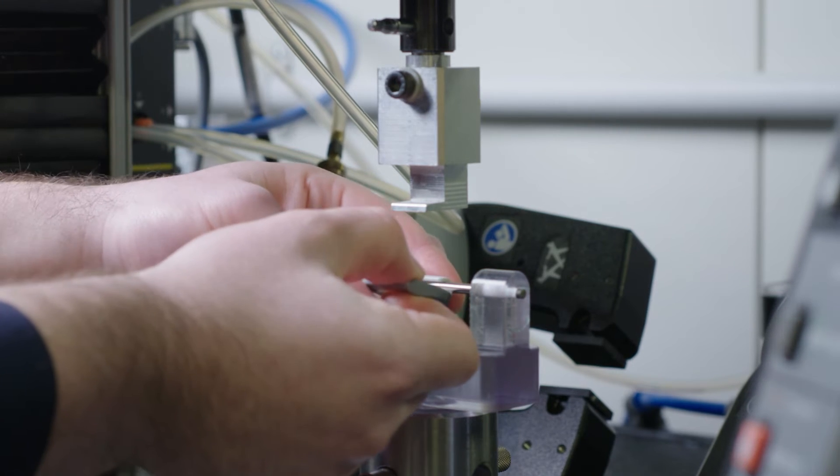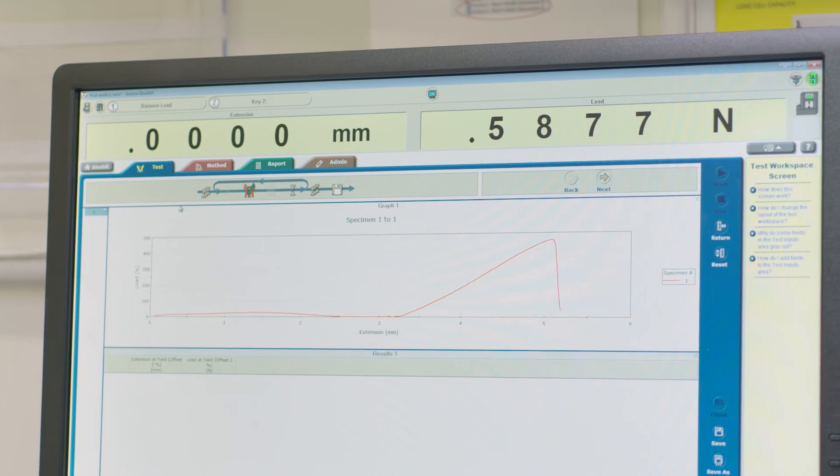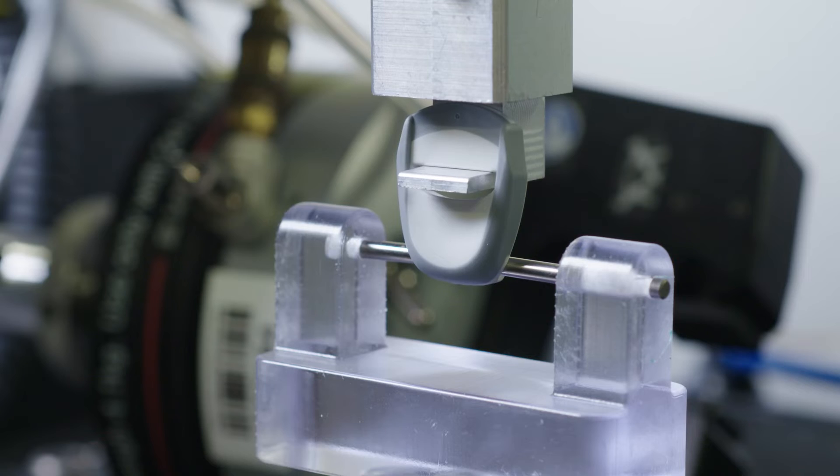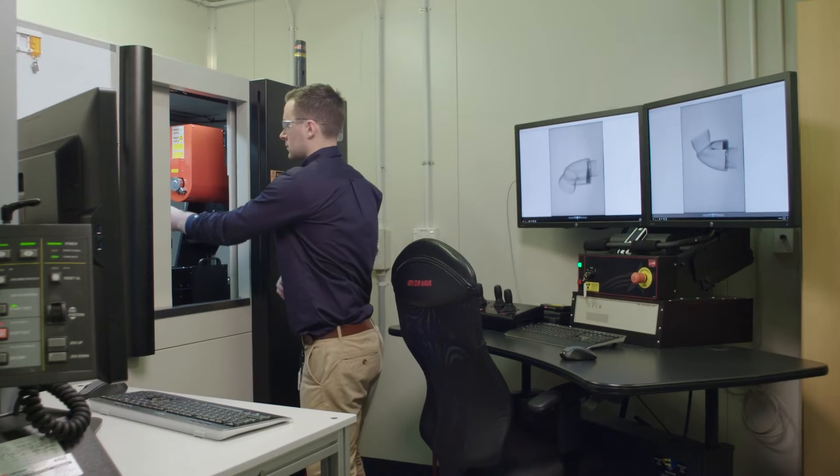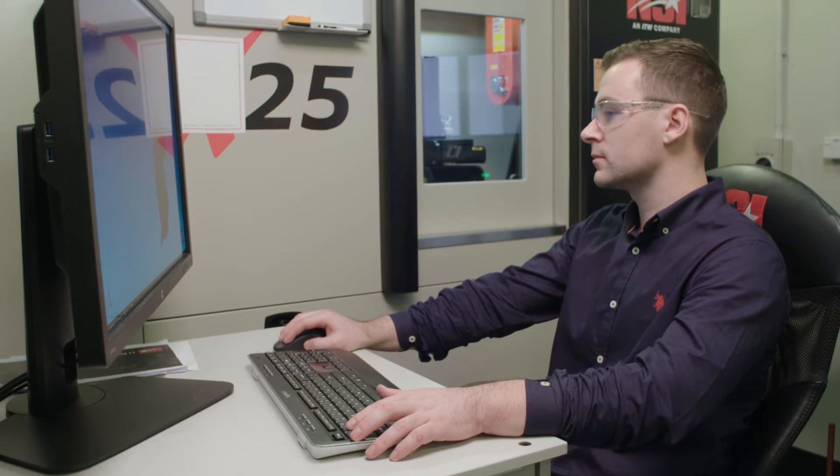All of our clips, connections, etc. on the mask—we test those to make sure that the force to connect or disconnect is within an acceptable level that a person can actually use. Then we basically take that a step further and make sure that all these components are strong enough to last the whole life cycle of the mask.